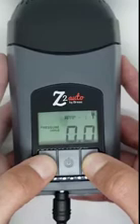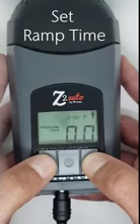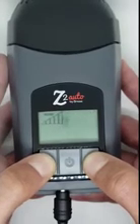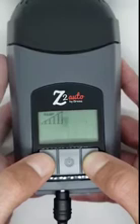It is important to note, if the ramp start pressure is set higher than the treatment pressure, the device will not function properly. To set the ramp time, press and hold the up arrow until the ramp time appears. Then, using the up or down arrow buttons, adjust the amount of time that you want the device to ramp. It can be set between 5 and 45 minutes in 5-minute increments. Once you have the ramp time to where you want it, press and hold the middle power button until it says accept.